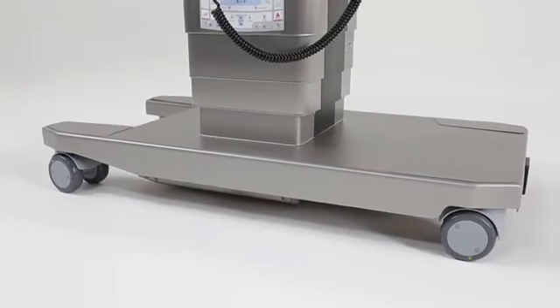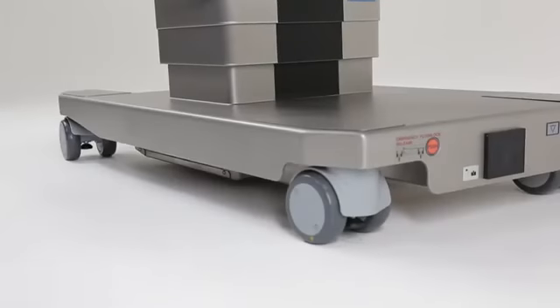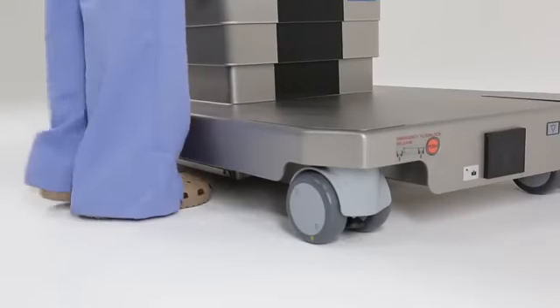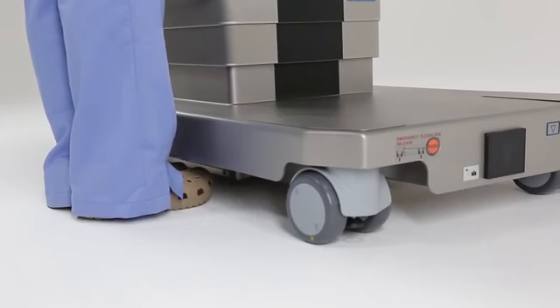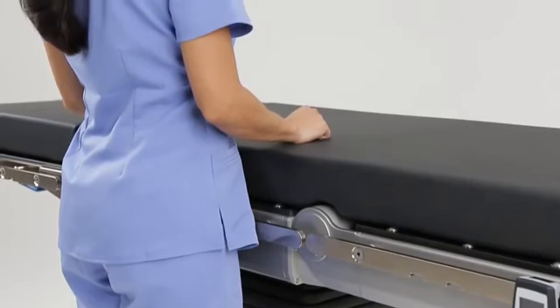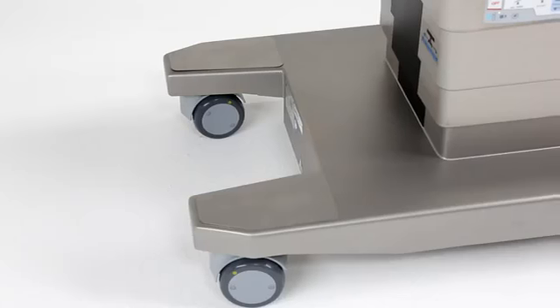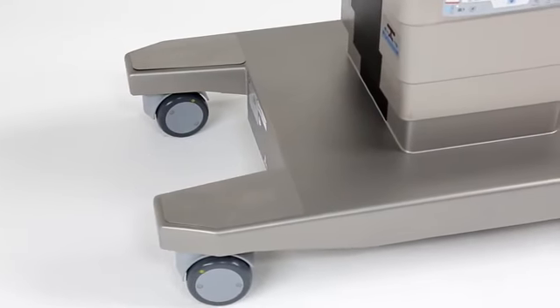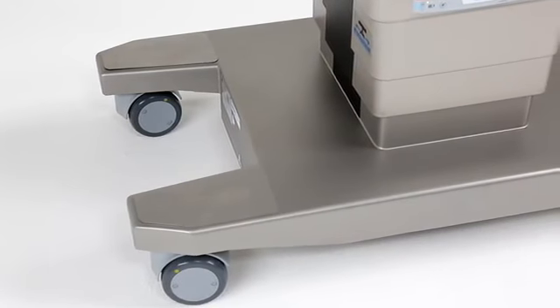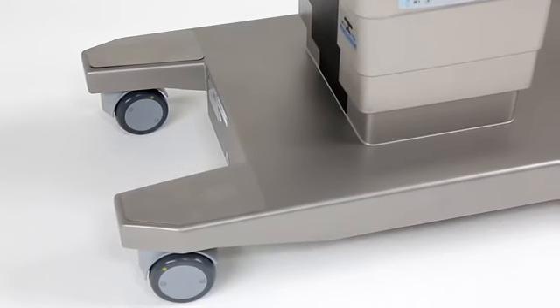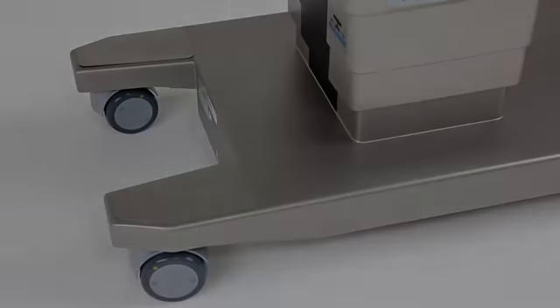The basic, sleek design of the base was crafted for surgeons and patients alike. Surgical team ergonomics are optimized by permitting their feet under the base, enabling proper posture and better access to the patient and the operative site. Its Y-shaped base allows for greater access for GYN and urology cases, along with optimal docking capabilities with leading robotic surgery technologies.